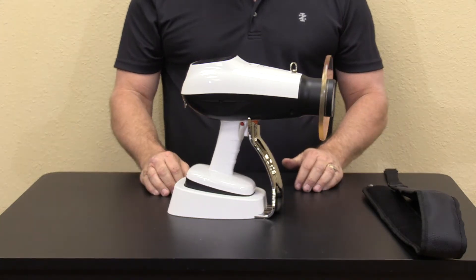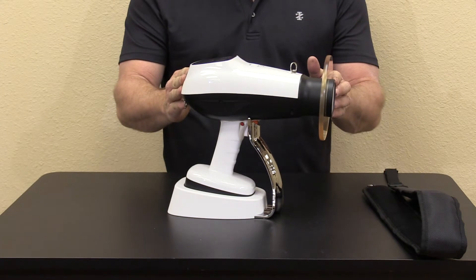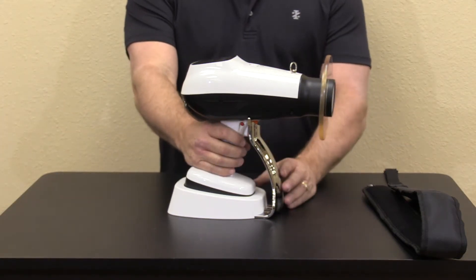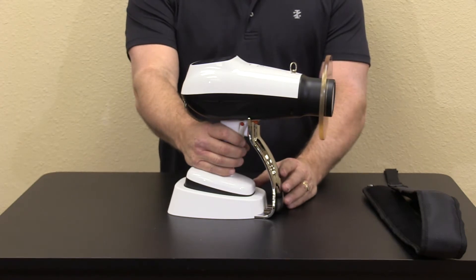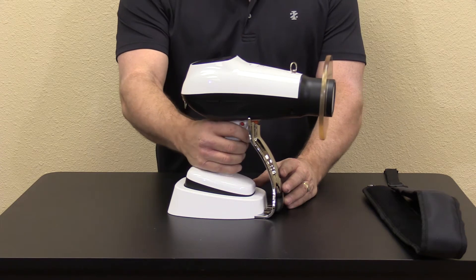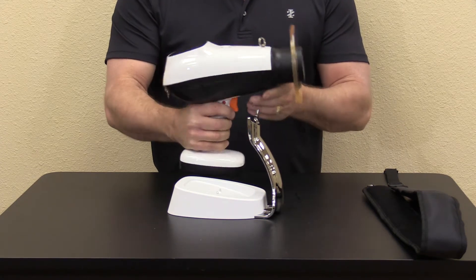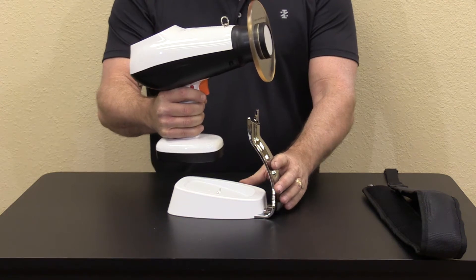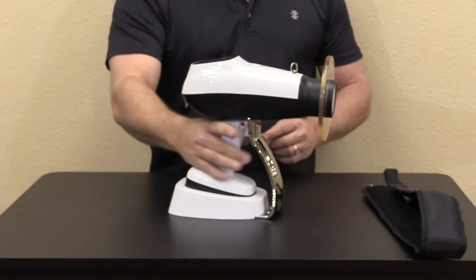This unit features a 0.4 focal spot, extra long battery life with three to five hundred shots or exposures between charges. This unit is extra light at only five pounds and comes with a handy docking recharge station for easy one-handed use.